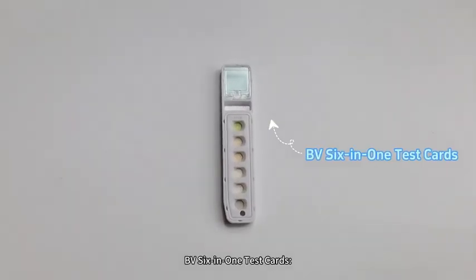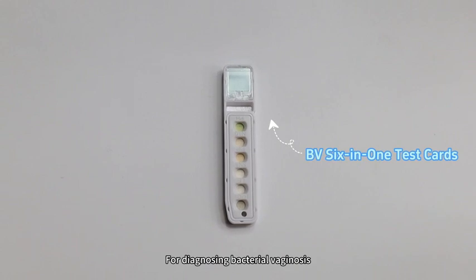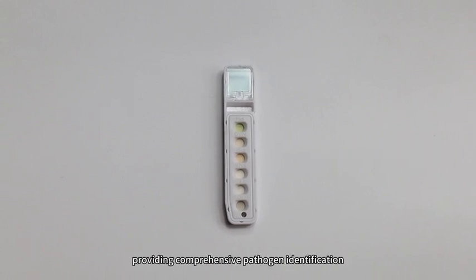BV 6-in-1 Test Cards are for diagnosing Bacterial Vaginosis, providing comprehensive pathogen identification.